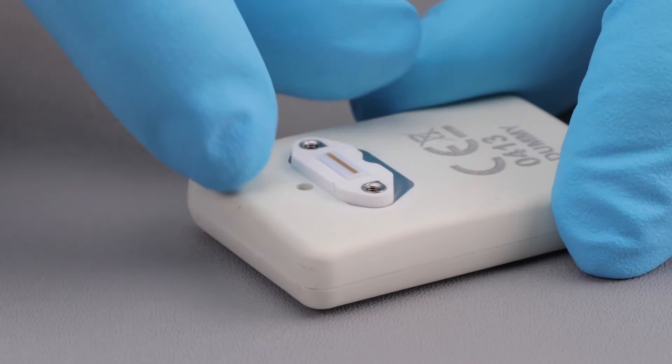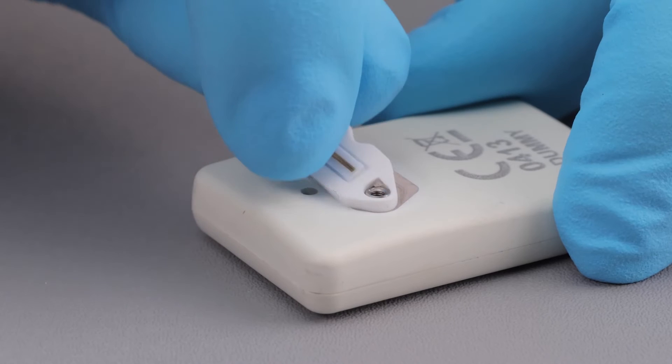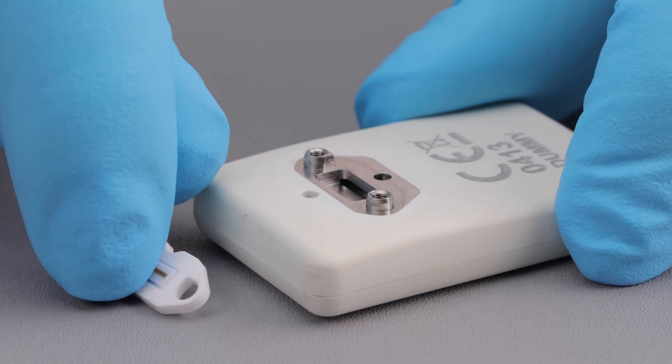Using your fingers, remove and replace it with a new white elastomer. Dispose of these parts, as they will be replaced.